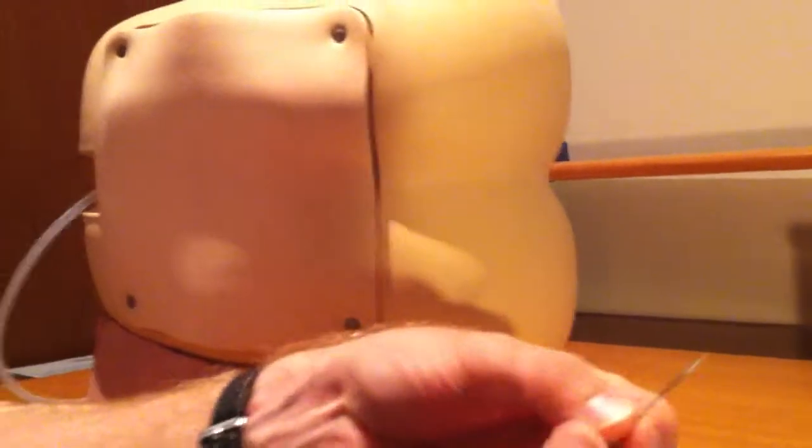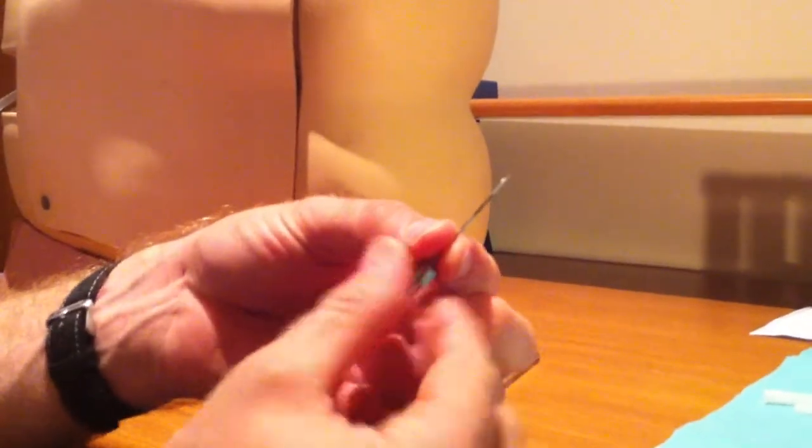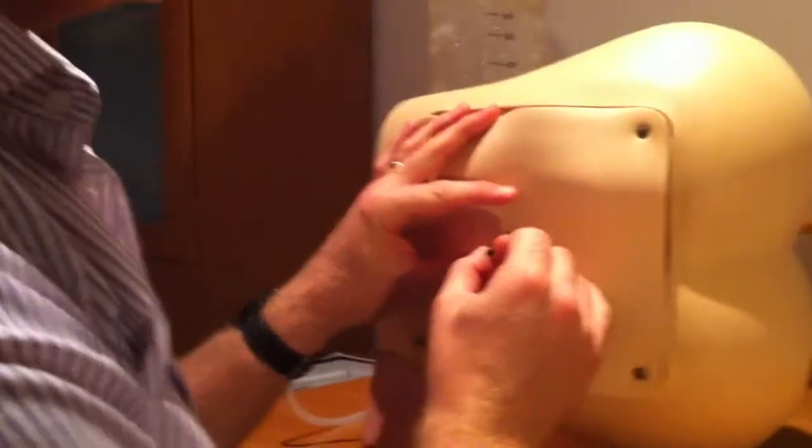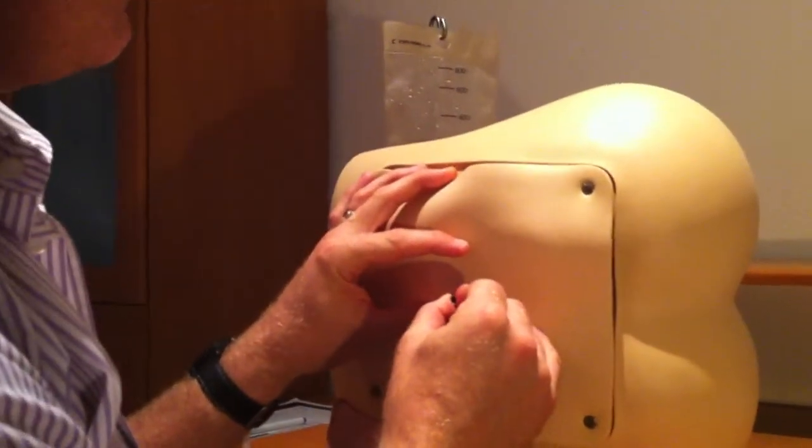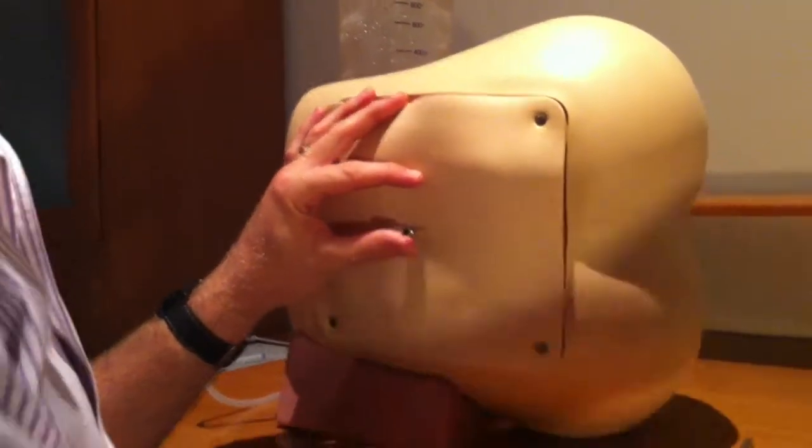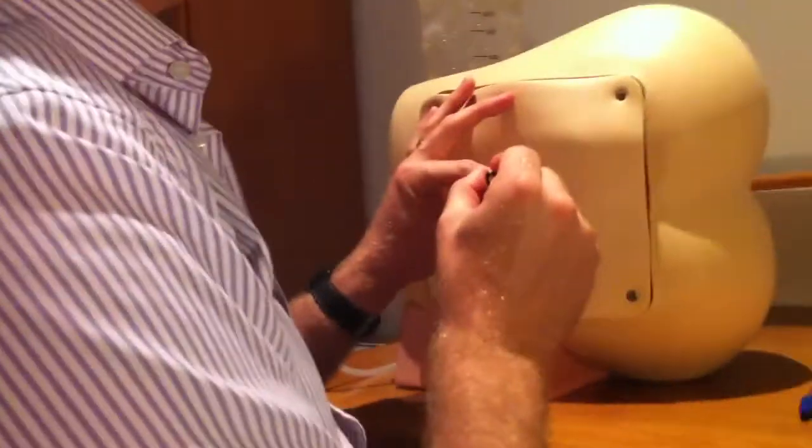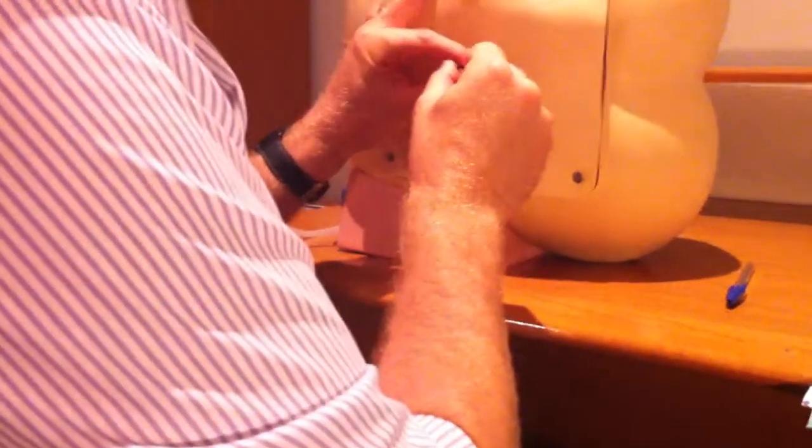It is possible to use an introducer which is quite a brutal looking needle. Now if you use an introducer you must anaesthetise the skin very well because it can be quite painful if you didn't, and through the introducer you can then pass your atraumatic needle.